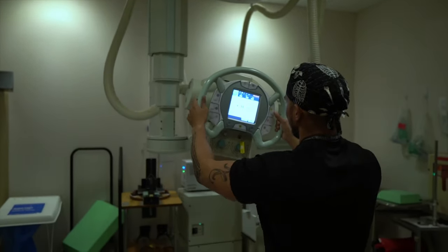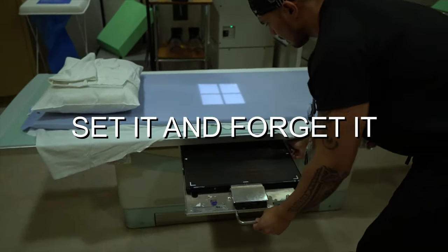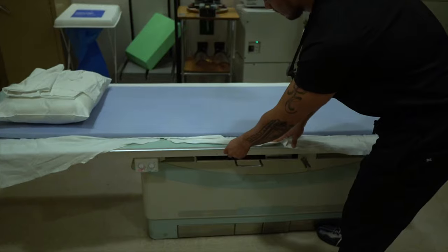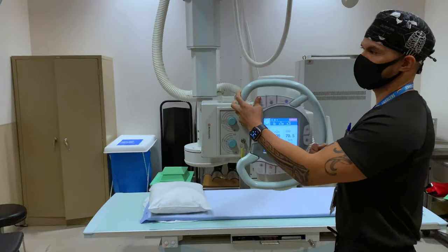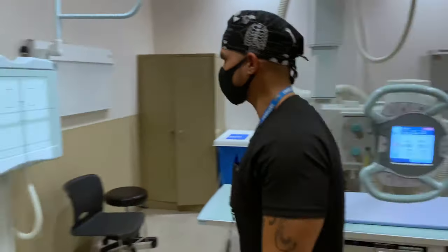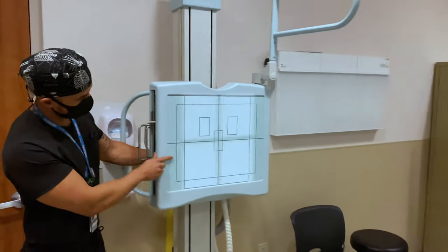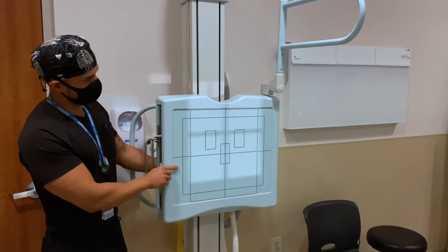Don't forget to align the tube to the bucky once you're done. Also, if you angle the tube and set it, move the table — not your alignment. This may look simple, but here I'm demonstrating a common mistake many students make. Always remember to double-check that your tube and bucky are aligned before heading back to expose.